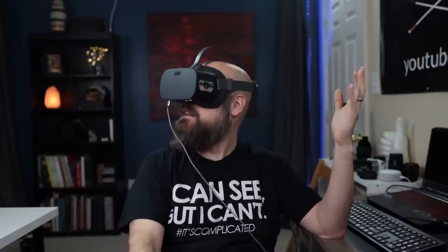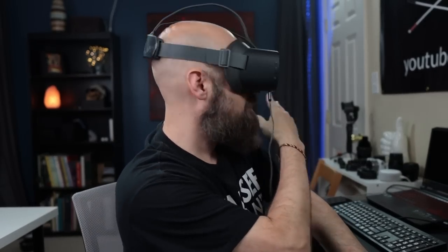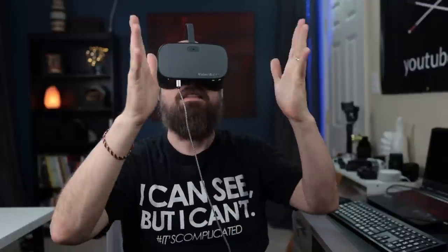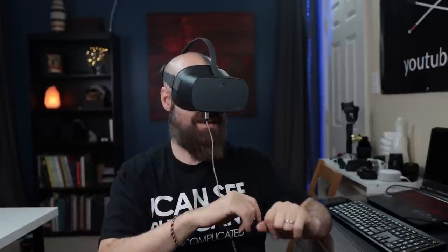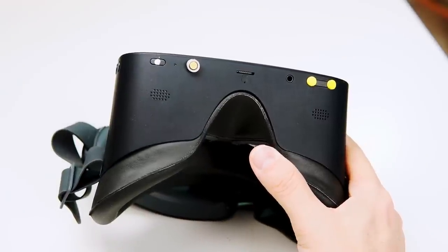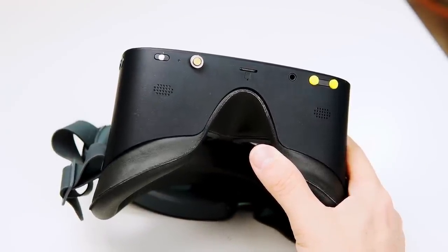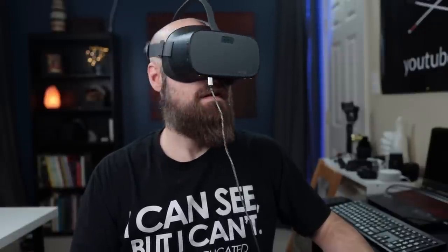It's a 3D environment — everything around you is black and the screen is right there. The audio comes through little speakers at the bottom, and there's also a headphone jack so you can watch discreetly without disturbing anyone. It looks good. That is the new and improved Vision Buddy — the world's first streaming media assistive technology device for the visually impaired.